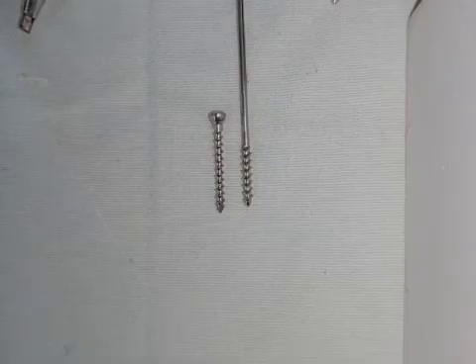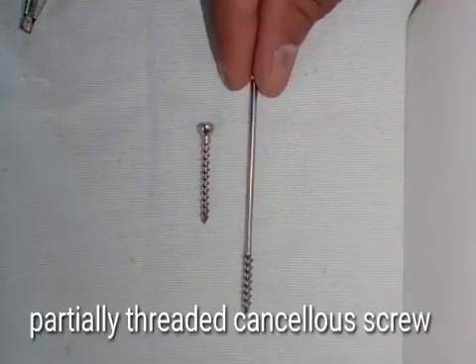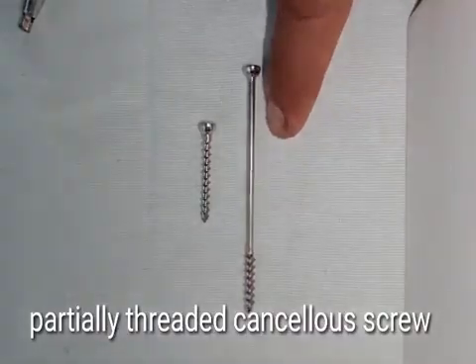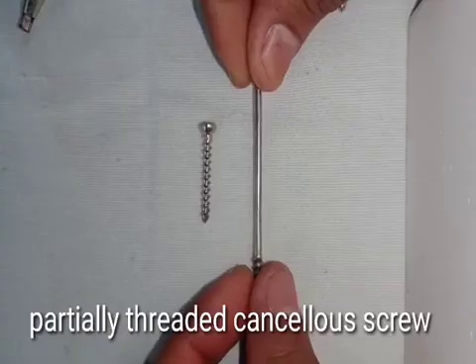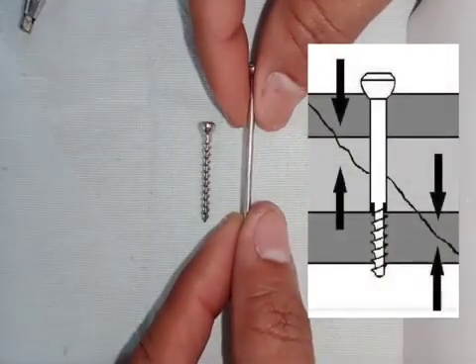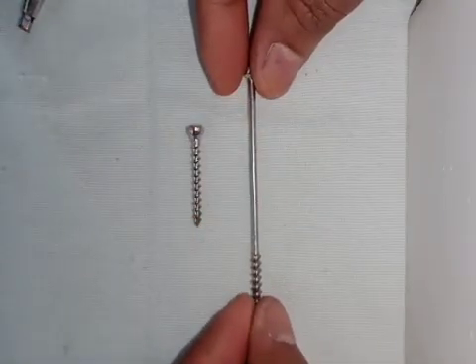Now that you know about cancellous screws, let us look at the different types. This is the usual type of cancellous screw. But here you have something called a partially threaded cancellous screw. You can see that the head and the threaded portion are the same, but the shaft is totally without threads. This type of cancellous screw is used to give compression to the bone — the threaded end catches the opposite side of the bone, and when you turn it, that part is pulled in while the head provides the counter force, pressing the two pieces of bone together.